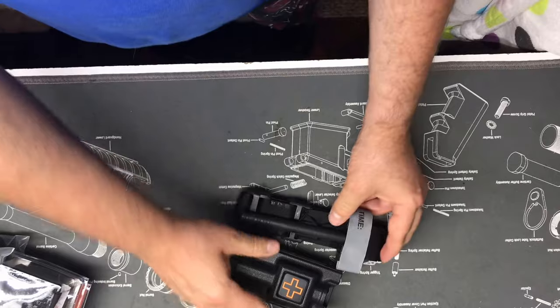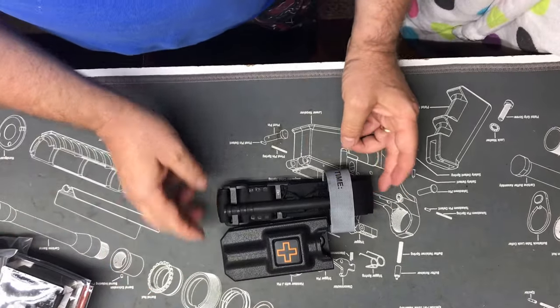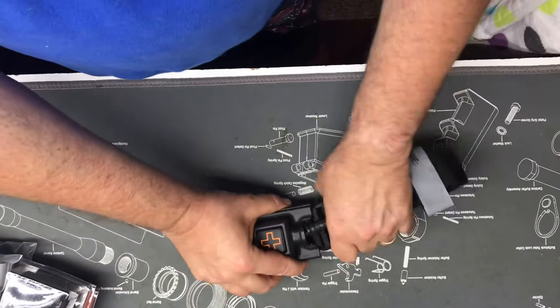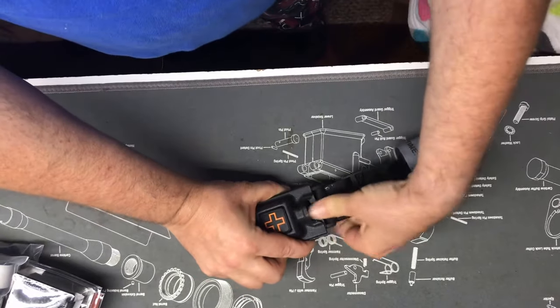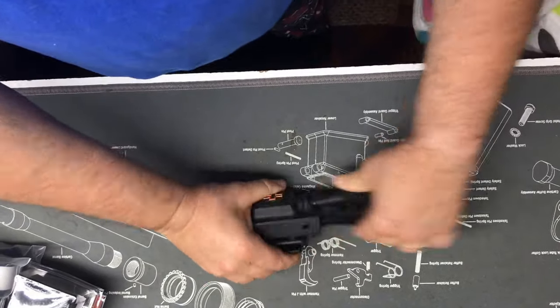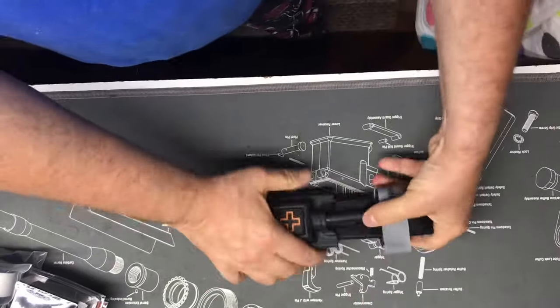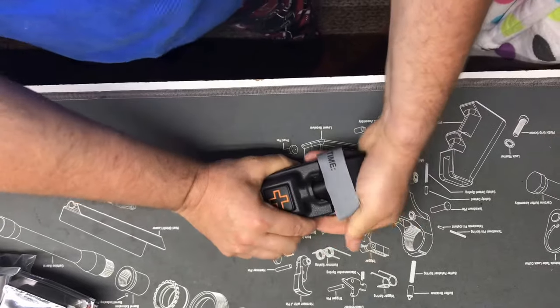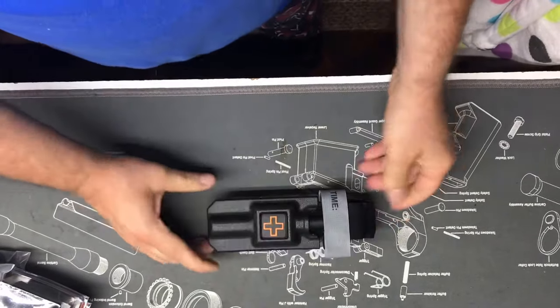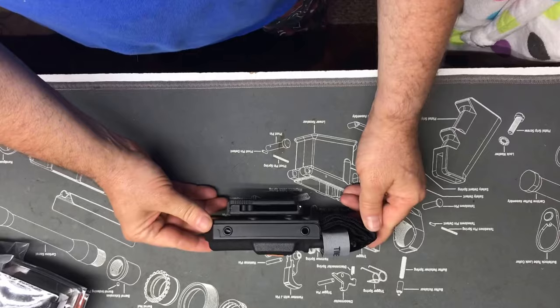So now that the windlass is in at the correct measurement right there, I'll take it and put it into the rigid TQ case from 1110. It goes in just like that, perfect. That's exactly what you get. That's what it looks like from the side.